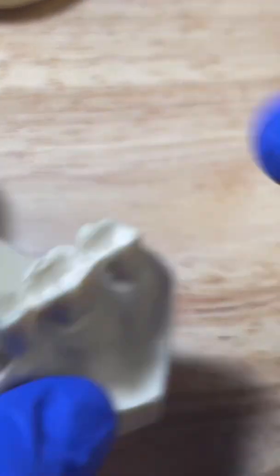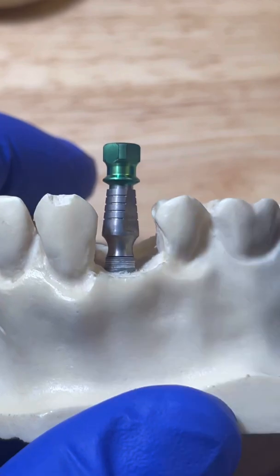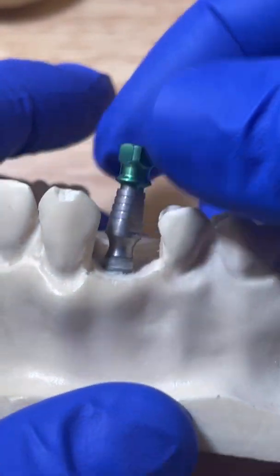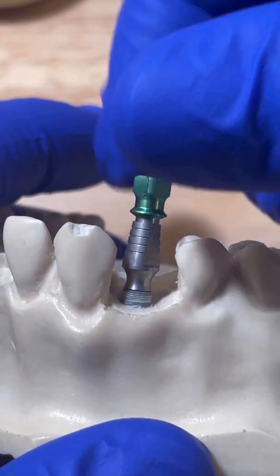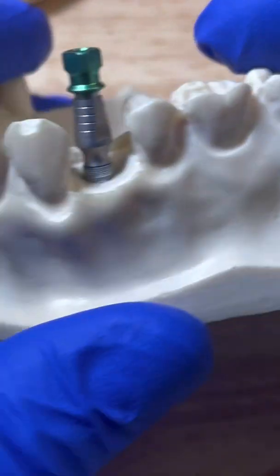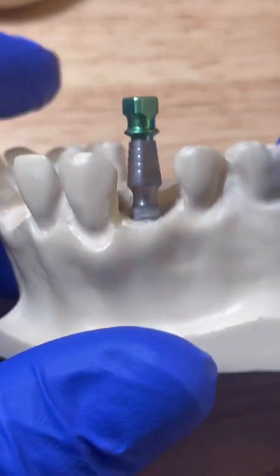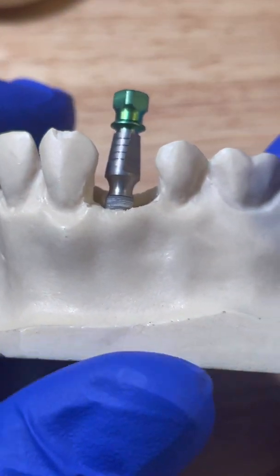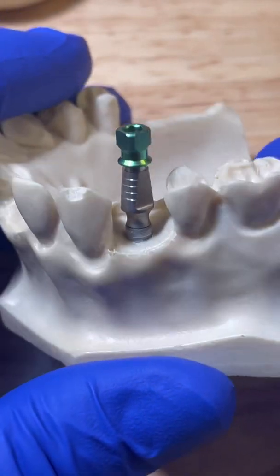So there are three different ways. The first way: take your implant out and re-prep. The second way: do two rotations in and one rotation out. The third way: use a drill tap. Those are three things you can do if your implant is engaging a little bit too tight and you want to place it safely without cracking anything.